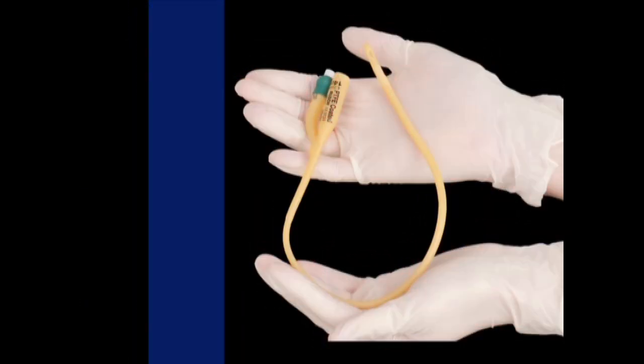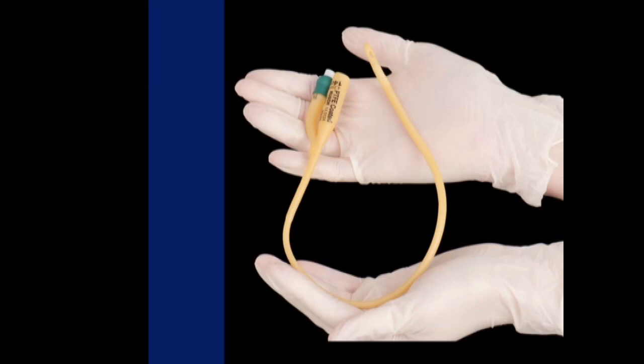This is a transurethral Foley's catheter. The tip of the catheter, which is inserted into the urethra and ultimately the bladder, has two openings which will drain the contents of the bladder through the central lumen of the catheter into a collection bag once attached.